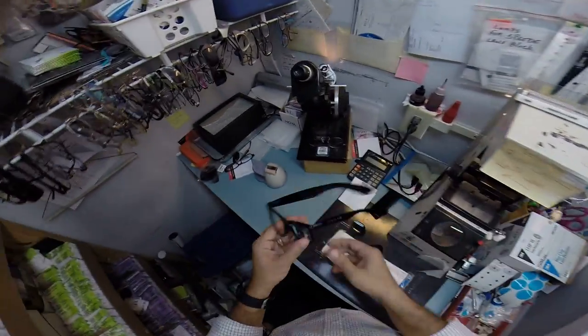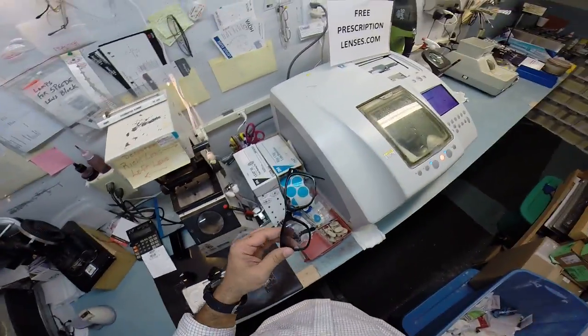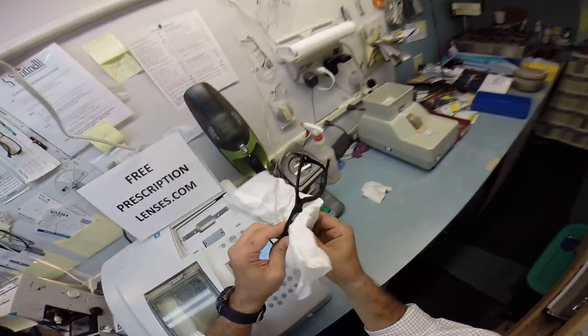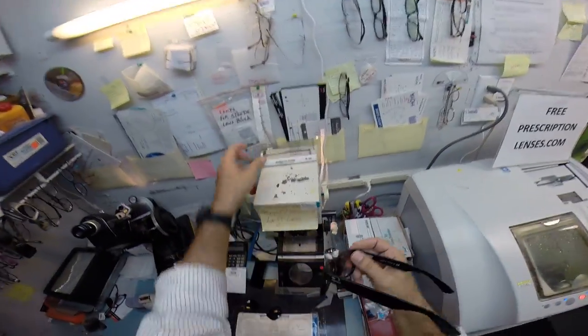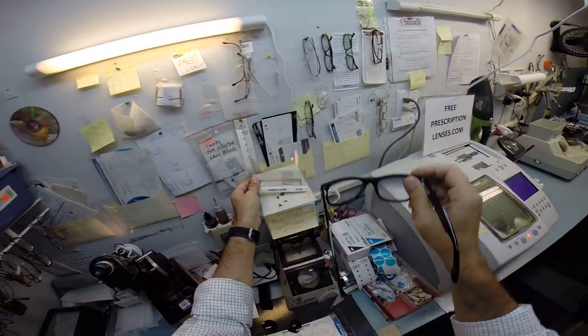Okay, so this block is no longer needed. I'm going to pull that off of your lens, pull that sticker off. I do want to do a little bit of quality control. I'm going to have a graph here. I hold it up to make sure that lens is in there level. And it is. I couldn't have done a better job if I cut it myself.